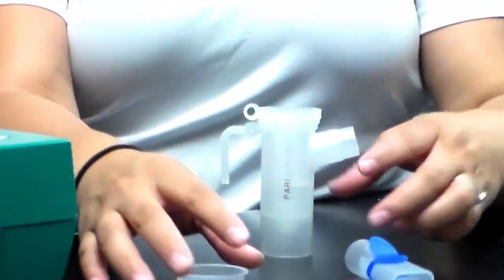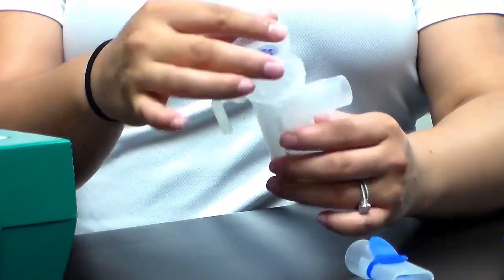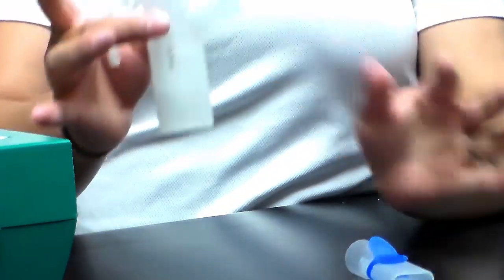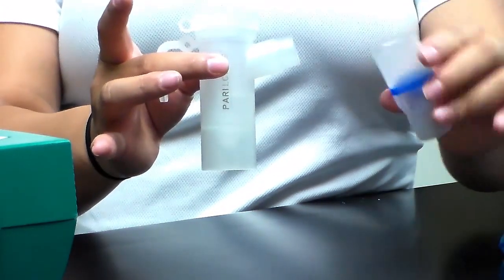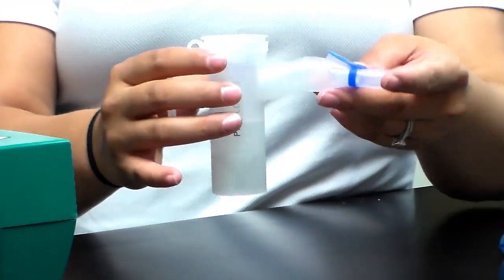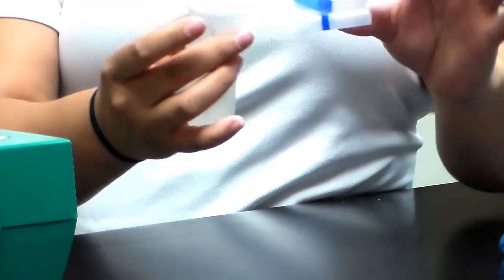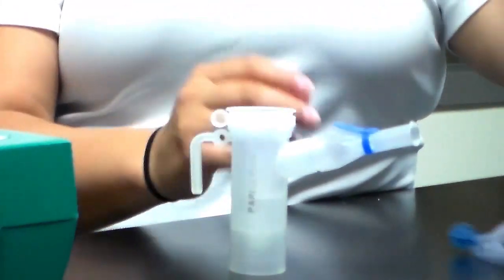Now let's take a closer look at putting these pieces together. The removable cap goes on top of the well. The mouthpiece is also easily removable for cleaning and goes directly on the front.